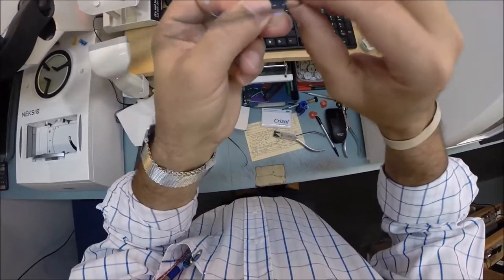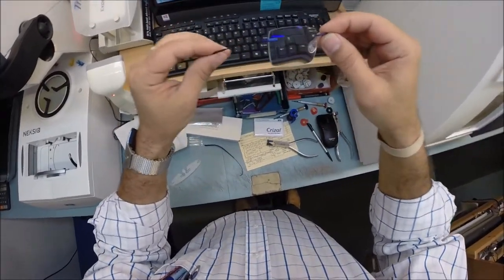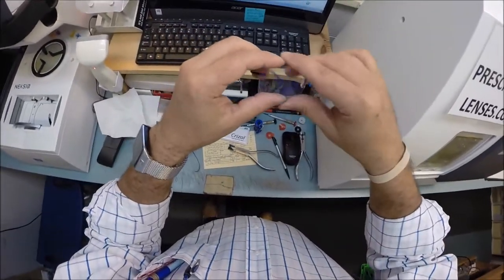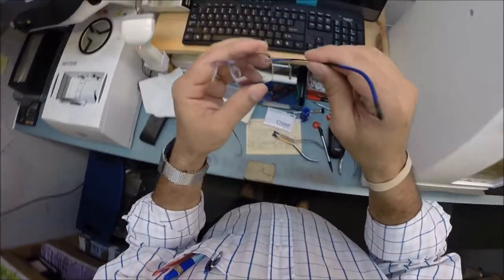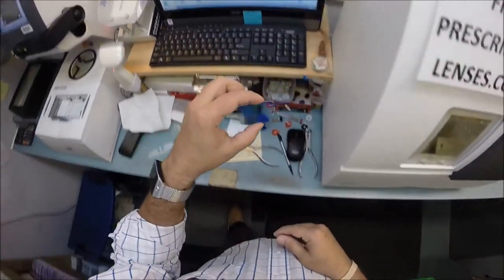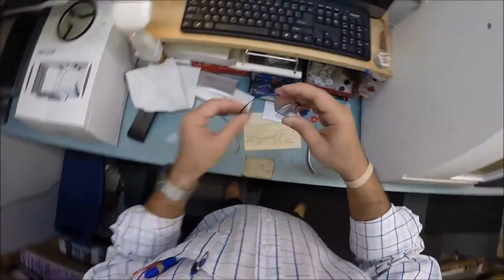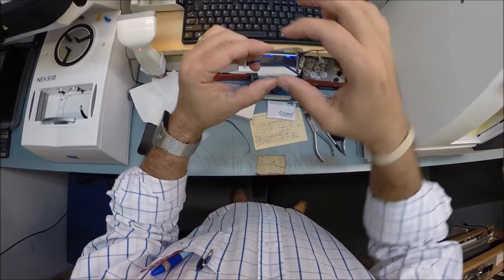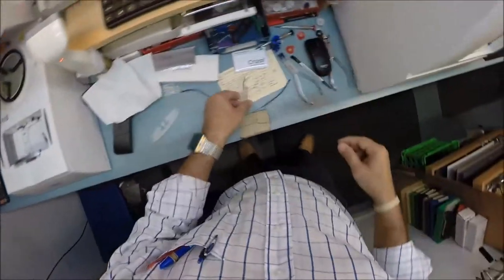That is crimped on there tight. These hold very well — there are no screws to ever come loose in this frame, those are compression fittings. In fact, this is the only pair of glasses allowed into space through NASA, for two simple reasons: there are no screws, and there are no opticians in space to adjust glasses if you bump your head floating around in zero gravity. Also, these weigh just 1.5 grams — there is nothing lighter than a Silhouette frame. Of course you're going to get the thinner, lighter-weight lenses in there too. They come in many colors and styles. Silhouette is the only company that gives you a choice of bridge width and temple length, so these fit like custom gloves.